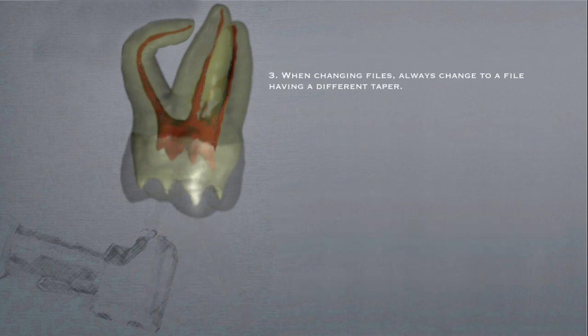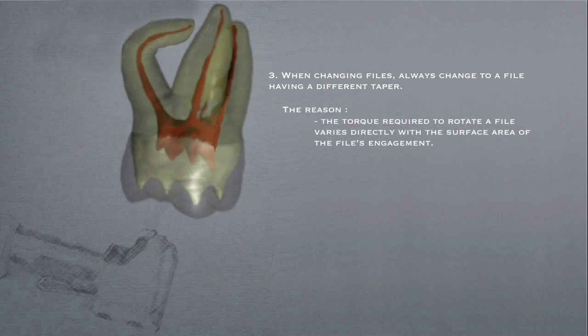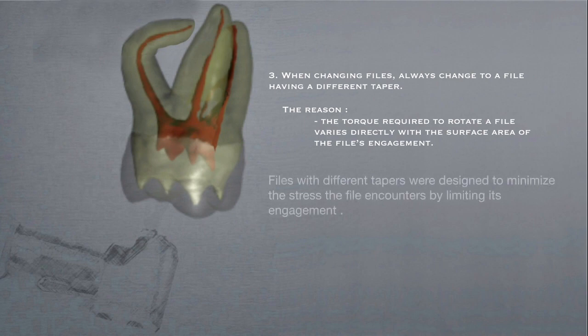When changing files, always change to a file having a different taper. The reason? The torque required to rotate a file varies directly with the surface area of the file's engagement. Files with different tapers were designed to minimize the stress the file encounters by limiting its engagement.